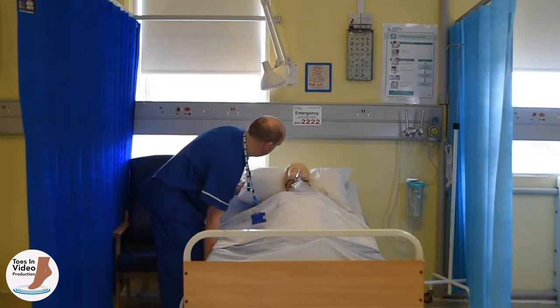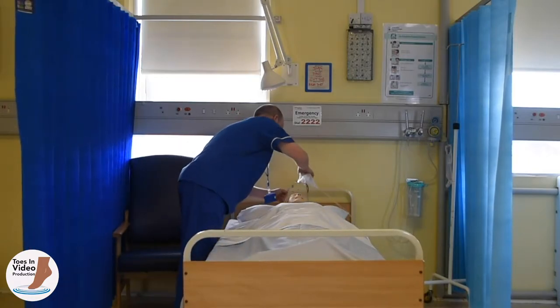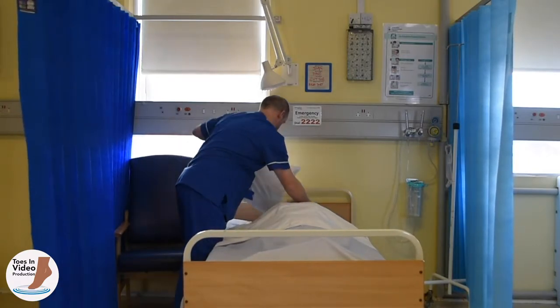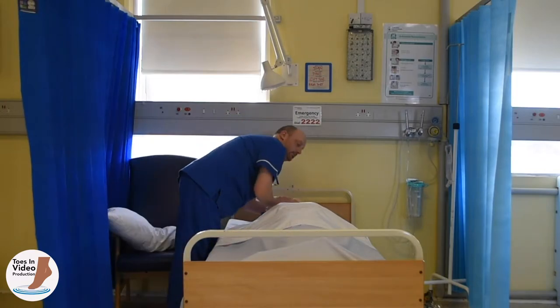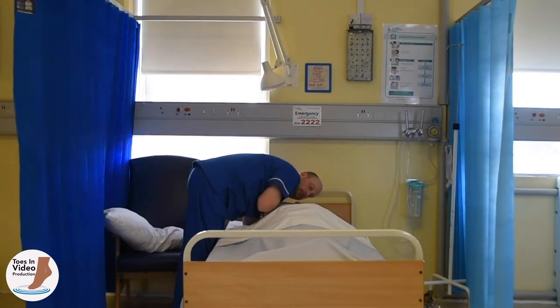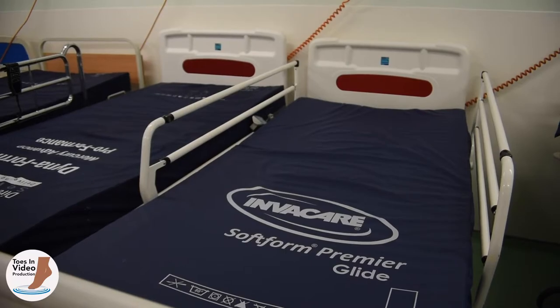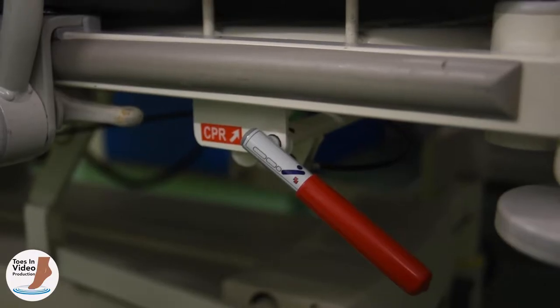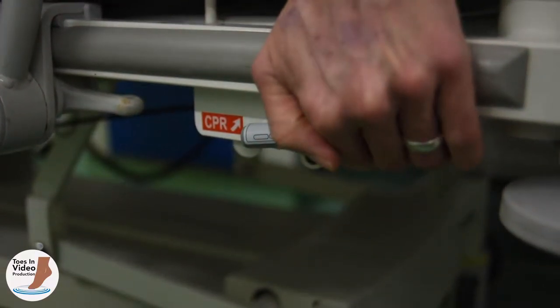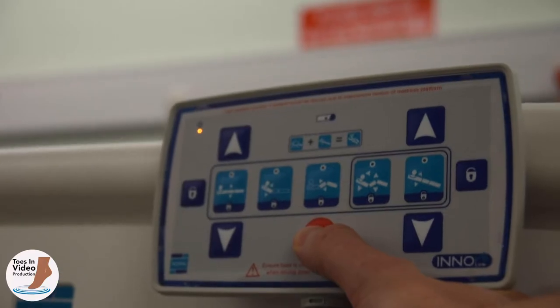Ensure you know how to lay any bed or trolley used in your clinical area into a flattened, lowered position to facilitate good quality chest compressions if required. Most beds or trolleys in clinical areas have CPR handles, levers or electronic buttons that carry out these actions.